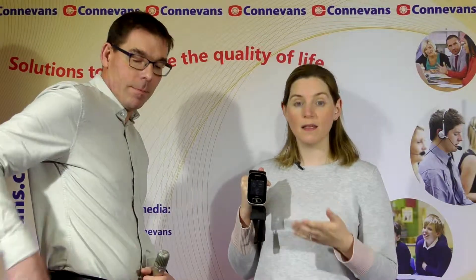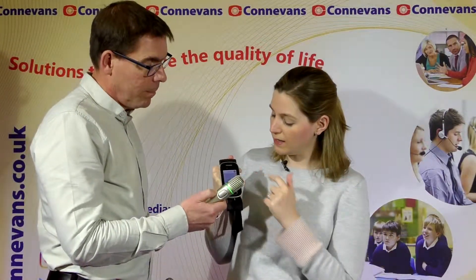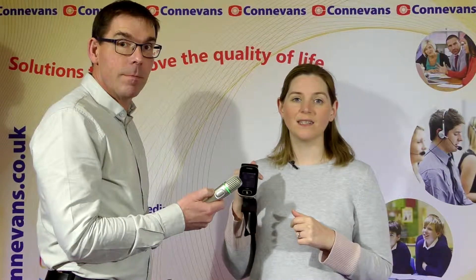If you want to add in another pass around microphone, yet again, you just go connect and it's all connected. You can have up to 35 microphones in a network.